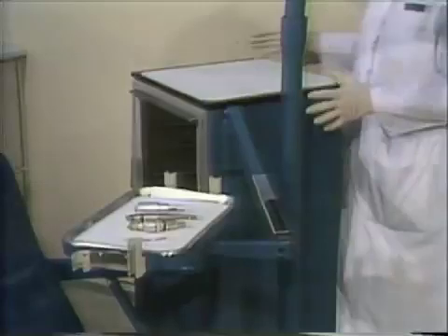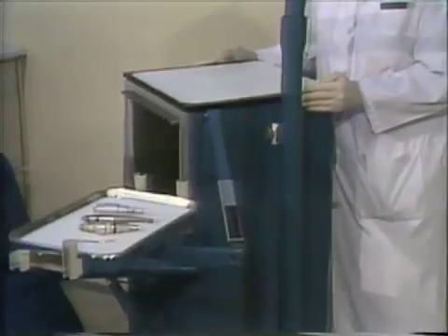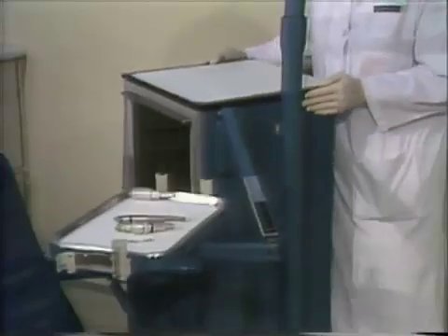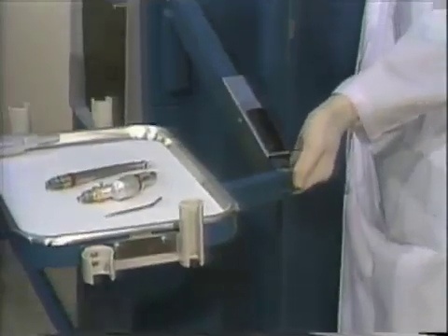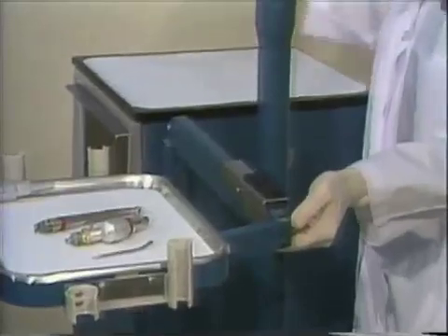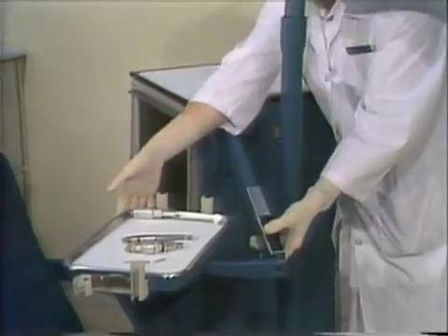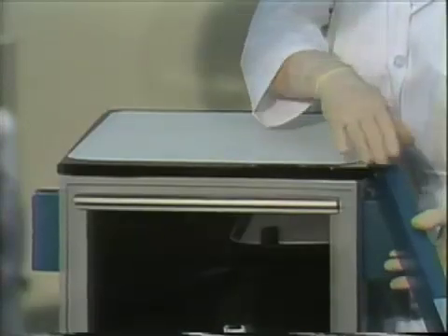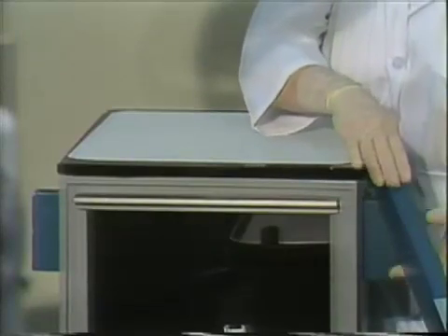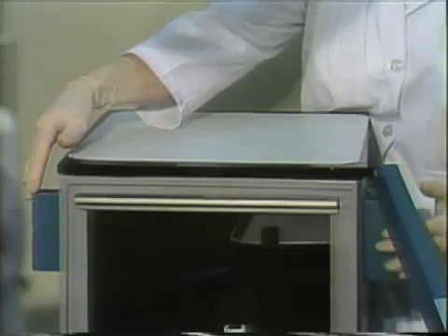The dental unit is movable. The arm may be raised to the desired level without the release bar. To lower the tray, depress the release bar. The arm is removable and may be positioned on the opposite side of the unit. If this is necessary, call the equipment maintenance personnel to reposition the arm.